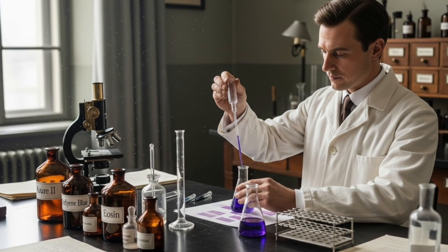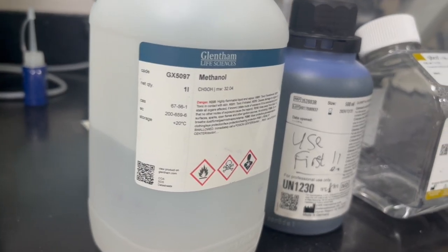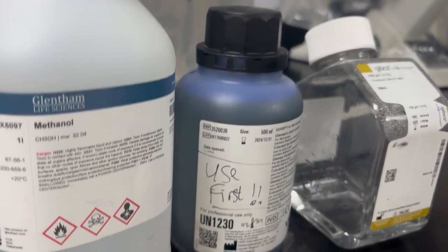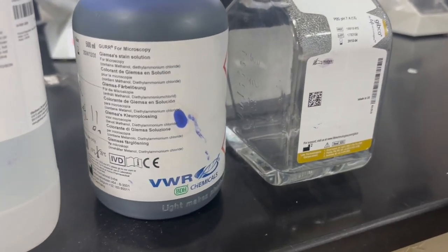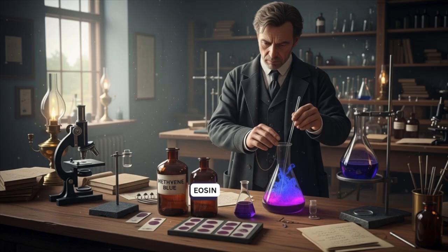So what do we use for staining? After you fixed it for just a second, you let it dry flat so that everything will be fixed. So your thick films and your thin films, what you use is a stain called Giemsa, I'm not sure how it's pronounced. This stain is a mixture of methylene blue, which is a basic dye, and eosin. Eosin is an acidic dye.